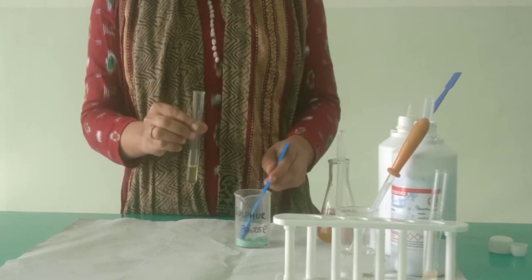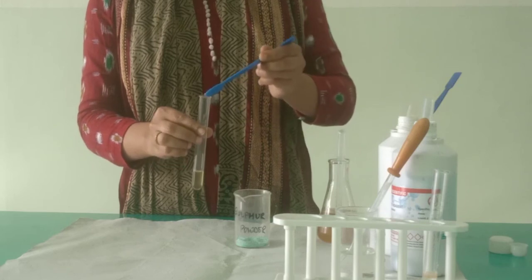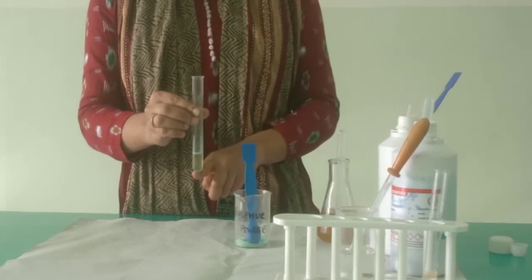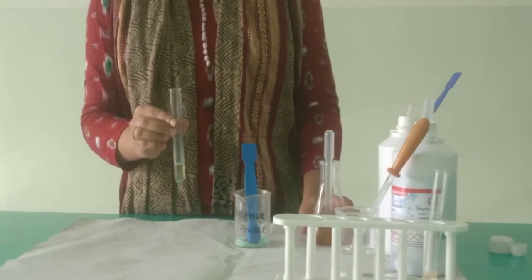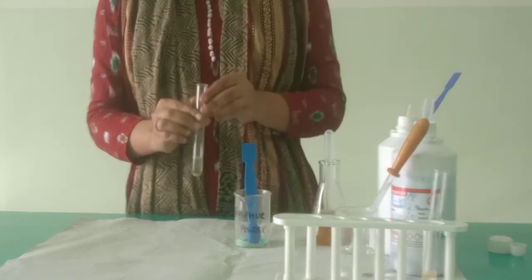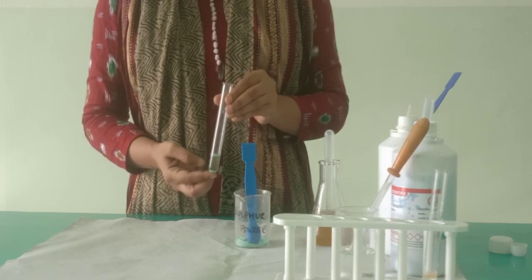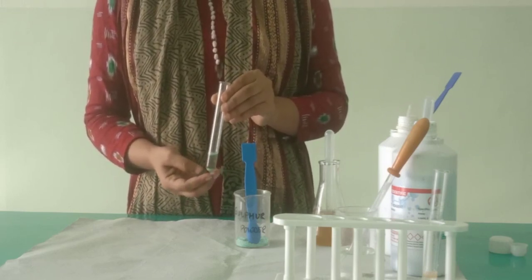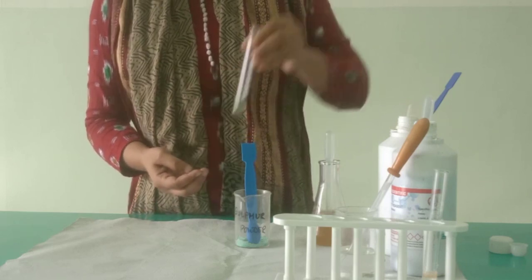So let us see. Now I am just adding a pinch of sulfur powder. And you will see that it is settling at the bottom. That means this urine sample has bile salt. So with this, students, we finish all the 4 tests for the detection of normal and abnormal constituents in the urine sample. In the next slides, I will of course be attaching the pictures where you can see the result very clearly.